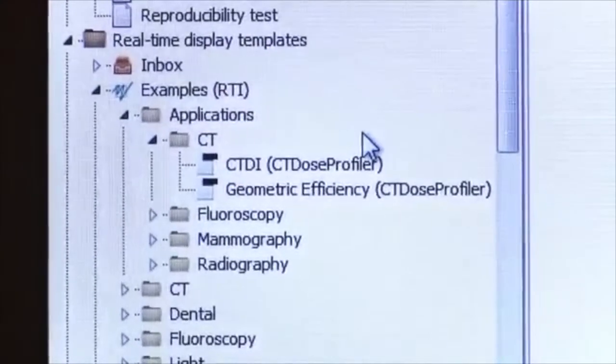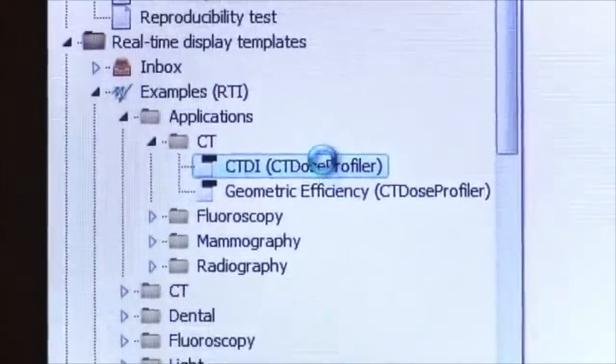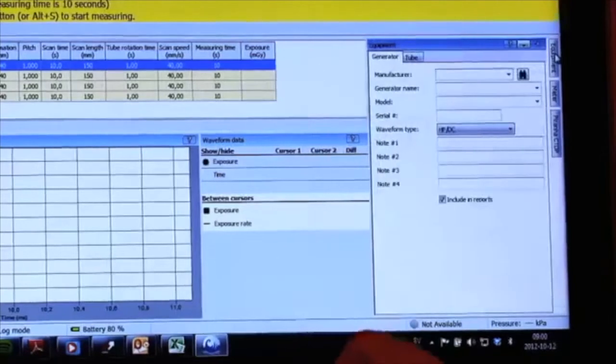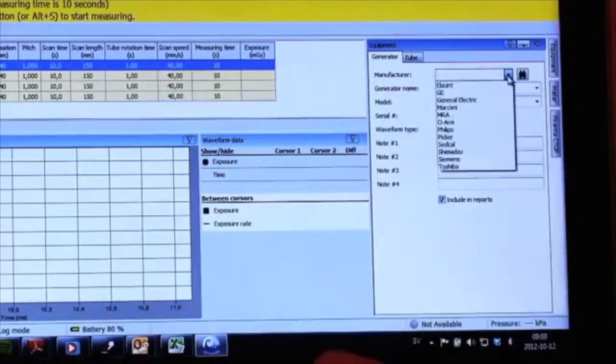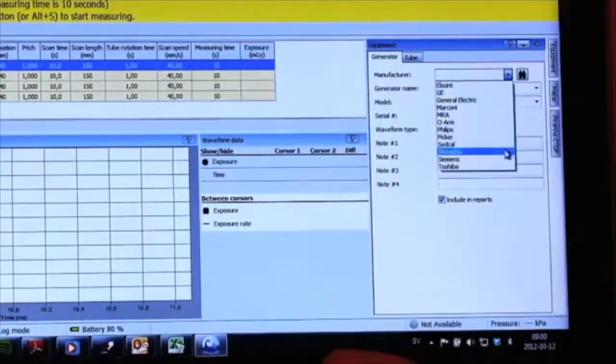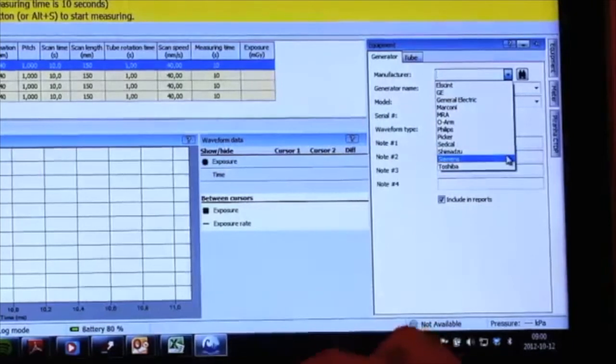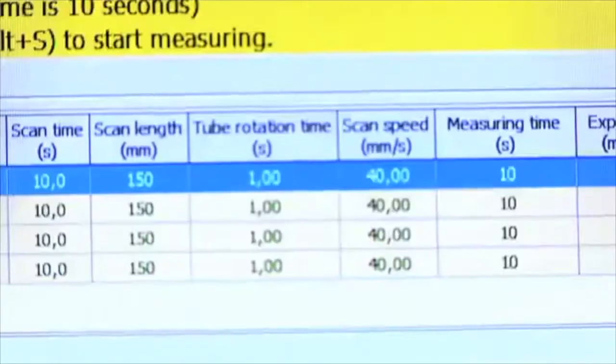In this instruction film, we will be using an existing template in Ocean. To begin, ensure the CT manufacturer and CT type are selected.